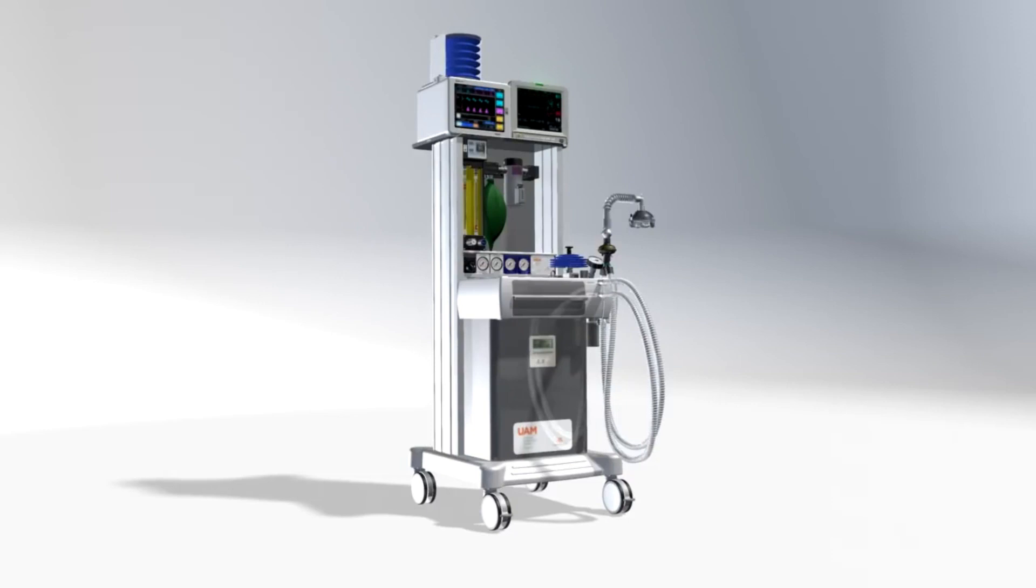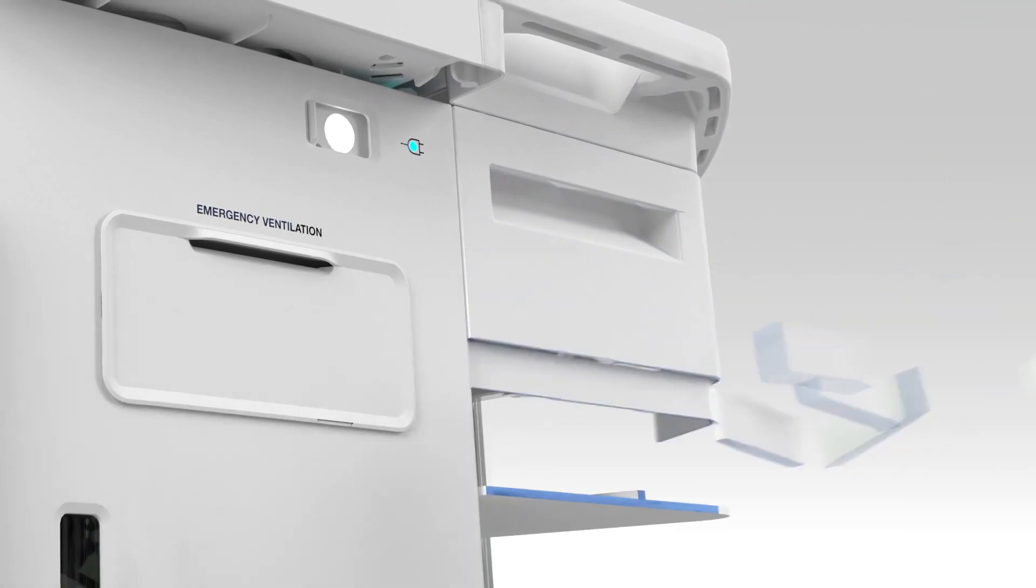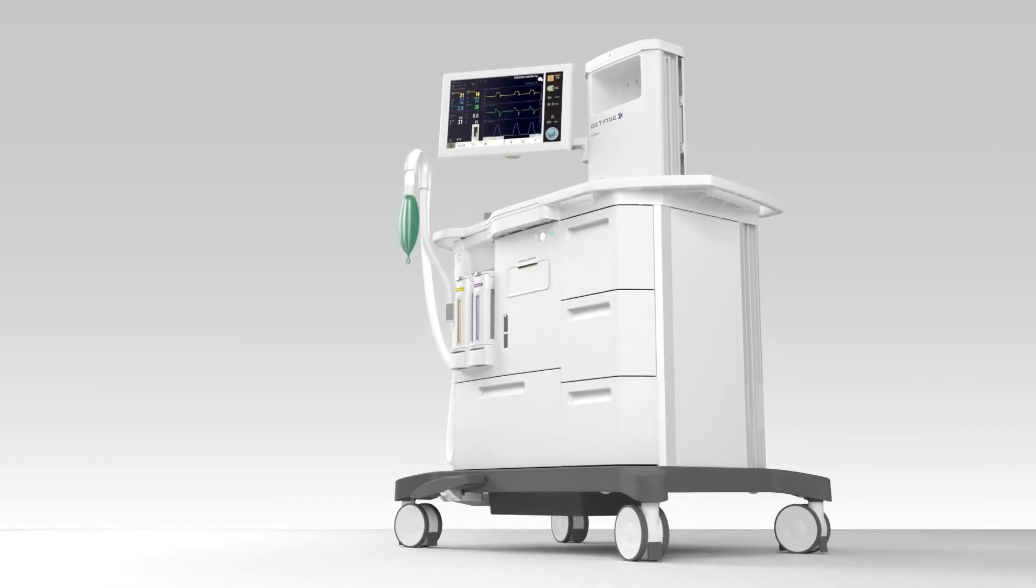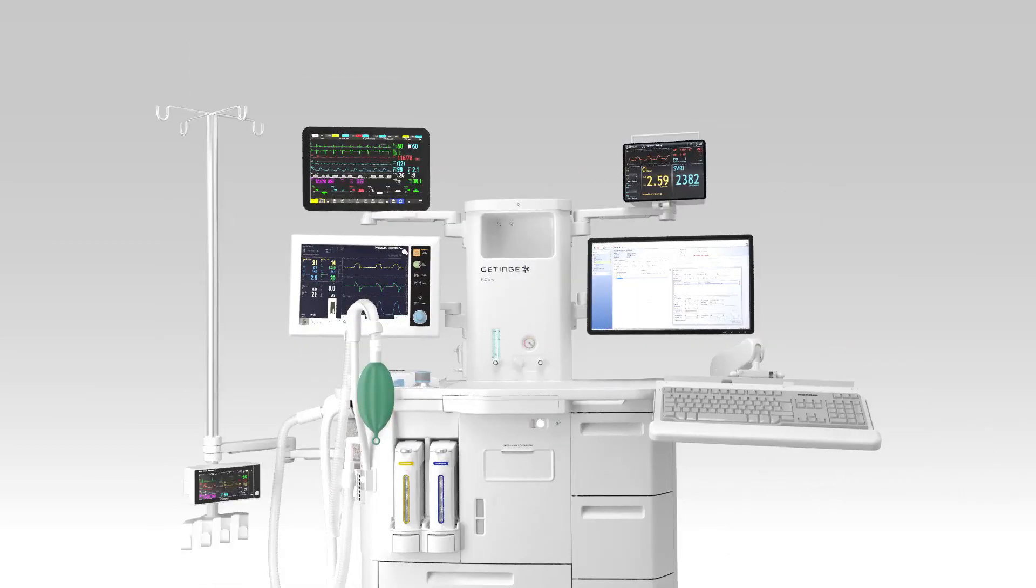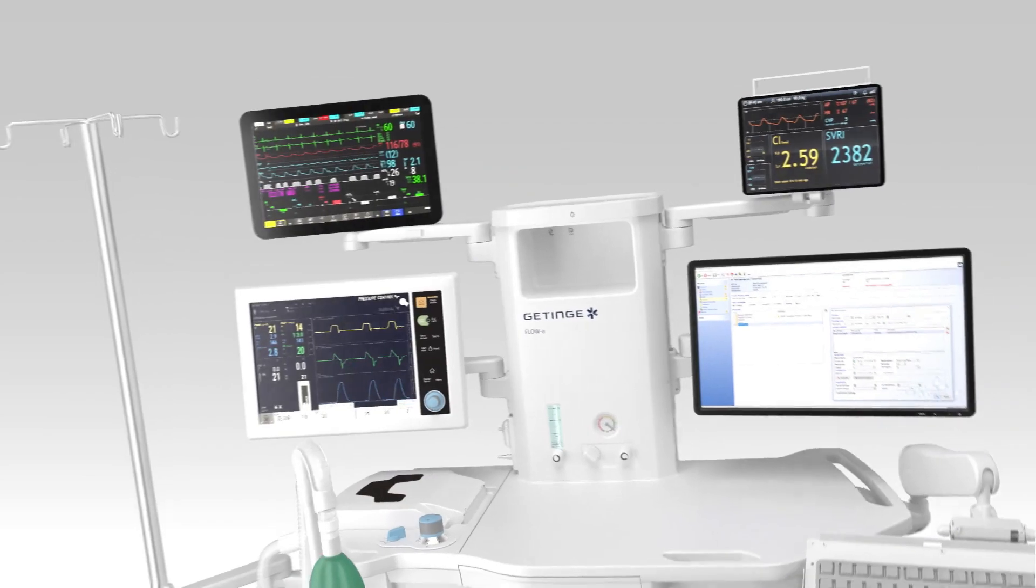Another important distinction is that scavenger interfaces may be open to the atmosphere or closed (gases within the interface may communicate with the atmosphere only through valves, the older type). The different types of interface have clinical implications.